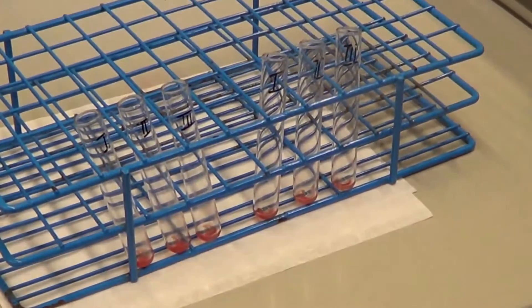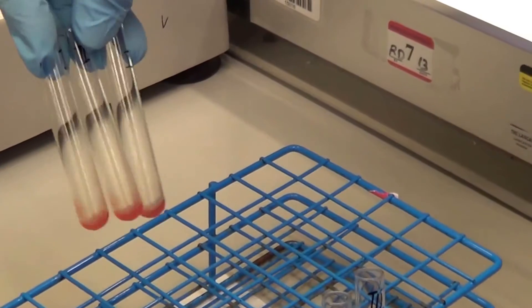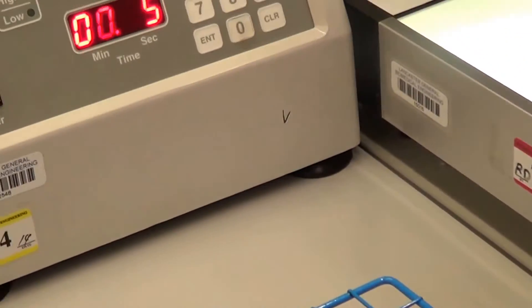You re-suspend the cell button and you mix it and centrifuge for 15 seconds.